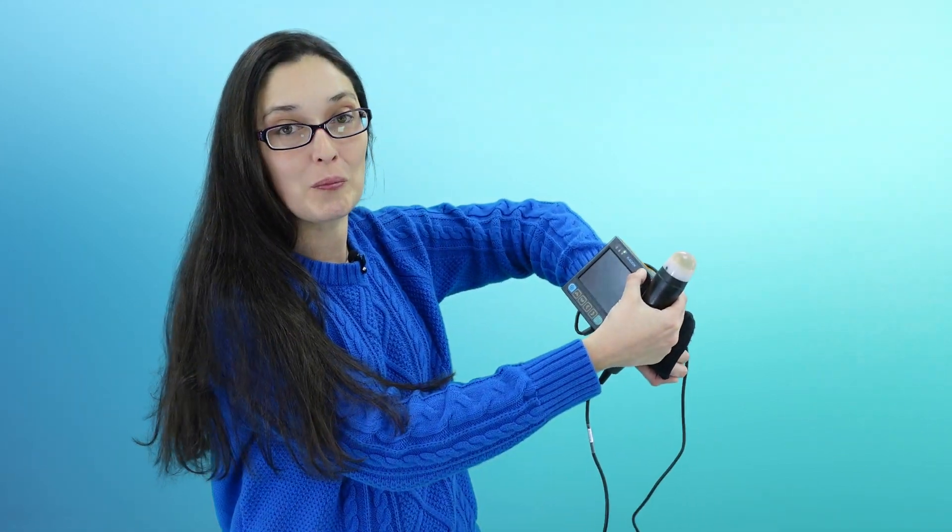The latest model, the MSU3, is more lightweight and portable than ever before. It boots up almost immediately and it has an internal SD card which allows you to save and then share images.